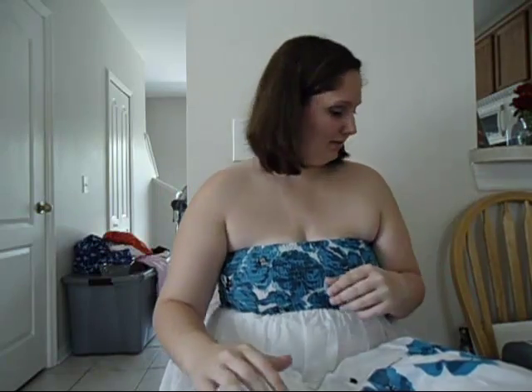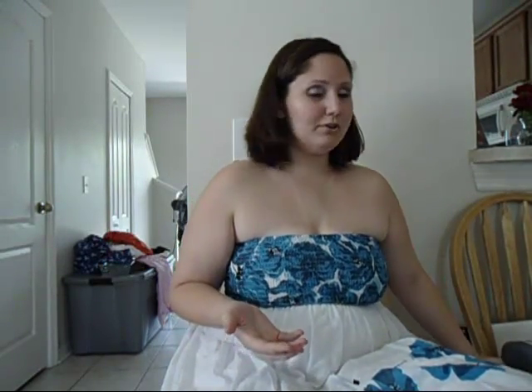But these are what I've been wearing. I don't wear them all day — I can't. They start bothering my eyes, my eyes get all red. They feel like they're going to fall out, and sometimes they do. So this is just going to be a contact care video. I'm going to go over how you should properly take care of your contacts.